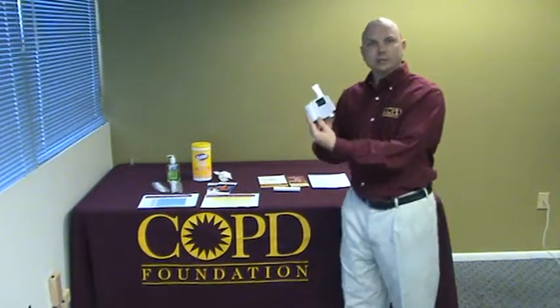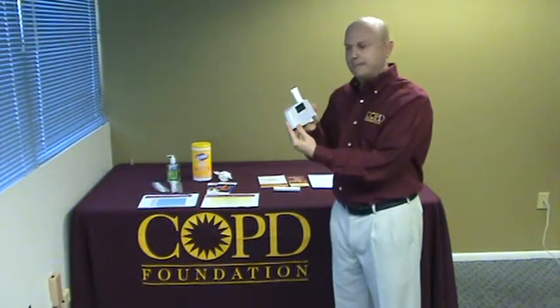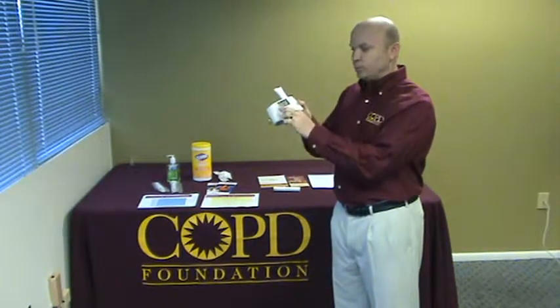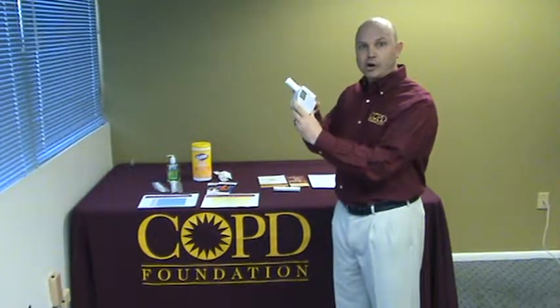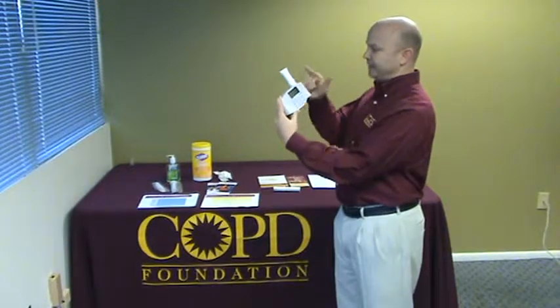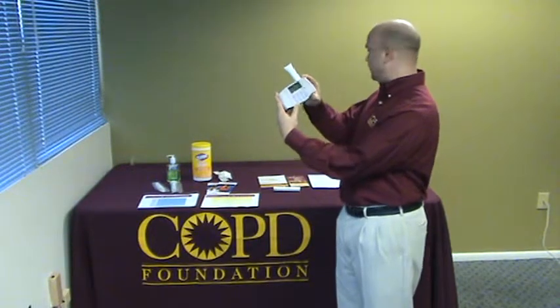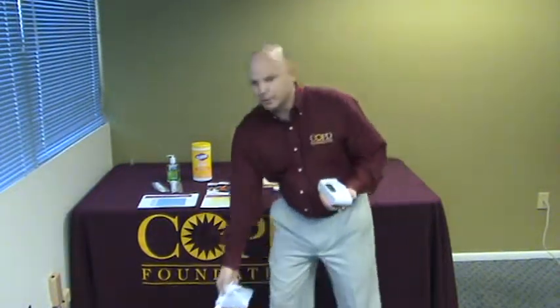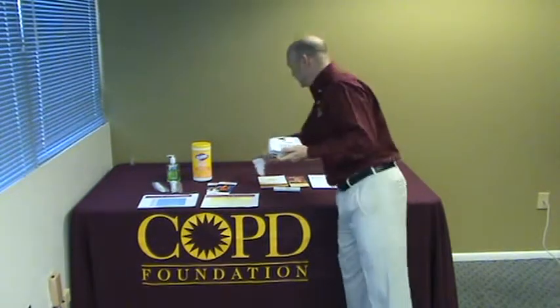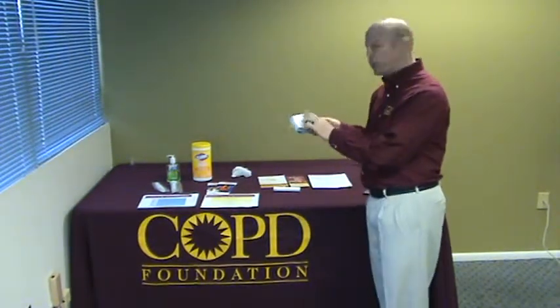In the last lesson, we completed doing the spirometry test. The next step is the data will be displayed on the screen above you. You want to discard the mouthpiece at this time — not by touching the mouthpiece, but by pushing it out from the bottom. Grab your disinfectant wipe, remove the mouthpiece. You can discard the mouthpiece and then wipe down the machine. At this point the machine has been cleaned, and then you can record the data on the report card.